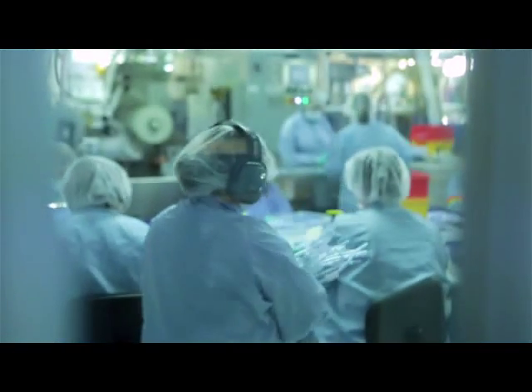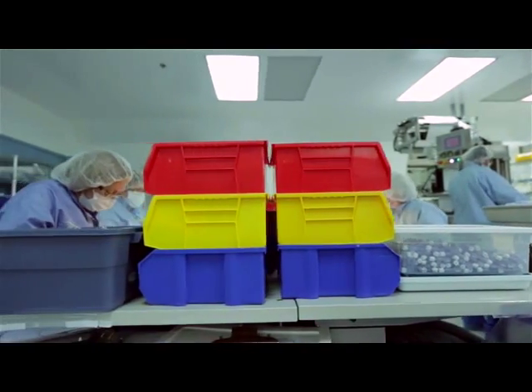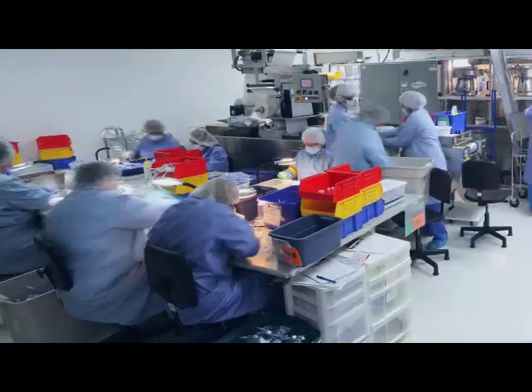Our workstations for the assembly of medical devices and for filling our pre-filled syringes have particle count and bio-burden loads that are four times more demanding than industry standards.